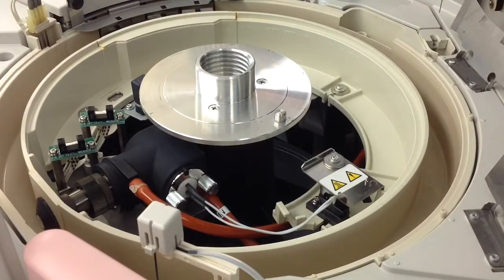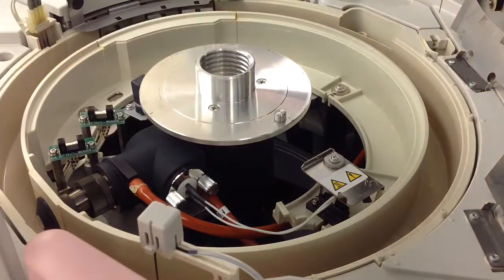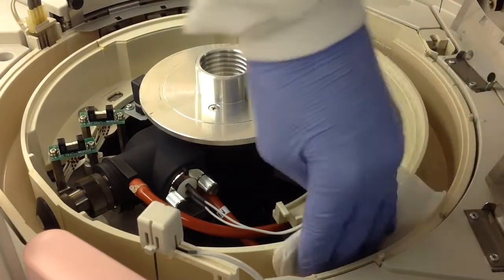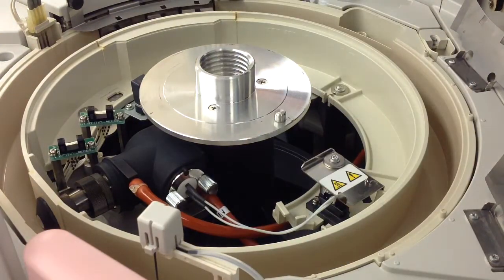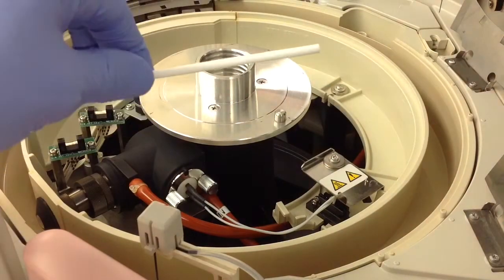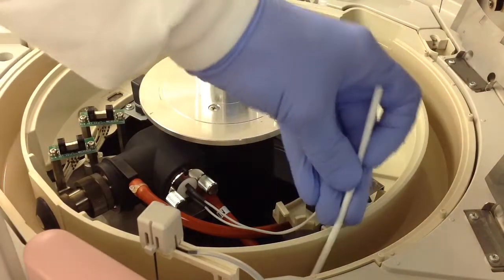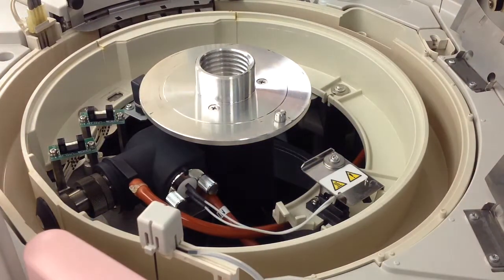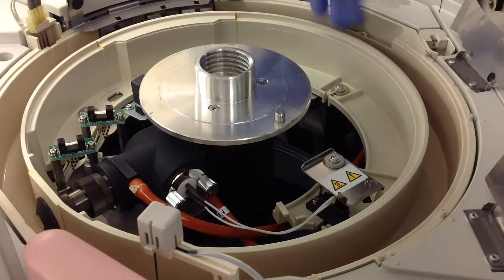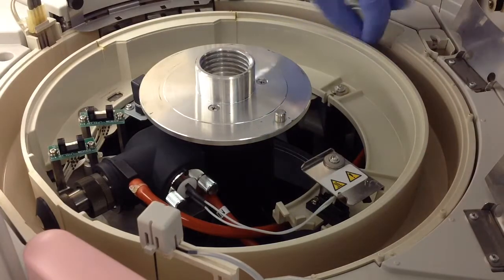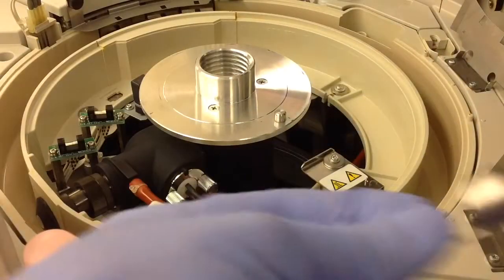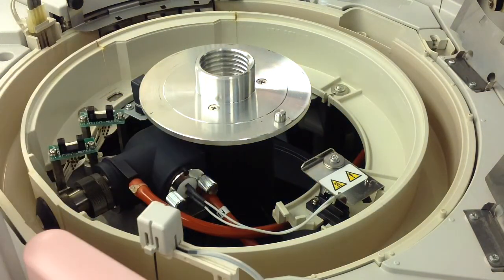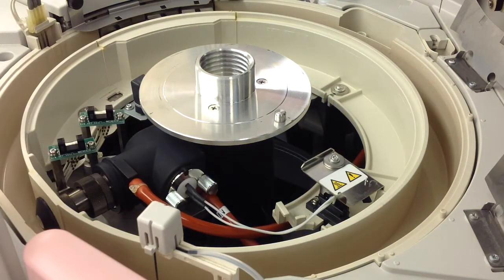For the cleaning, just grab your lint-free gauze and get out any growth in here. Wipe it down, get any of the grit out. You can use our Osmo cleaners to get in the crevices a little bit better than you can with the lint-free gauze. There's also a water drain filter here in the back - just pull that out and clean out any debris with deionized water. Don't forget to put it back in.